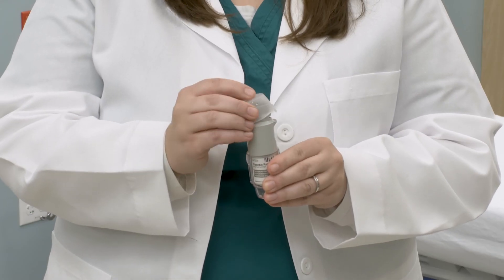After you've completed all puffs for that dose, you'll replace the cap and store the Respimat away until you're ready to use it again.